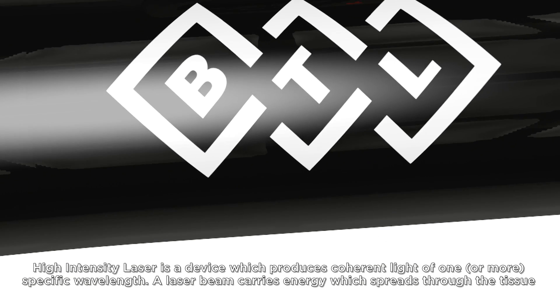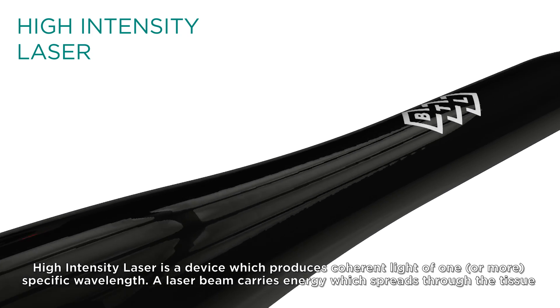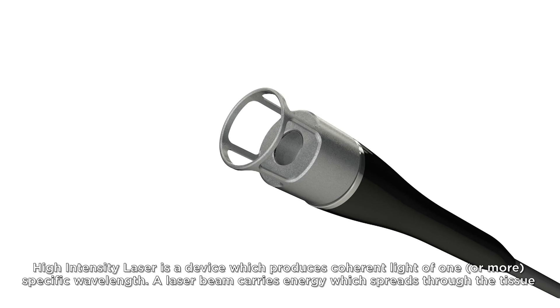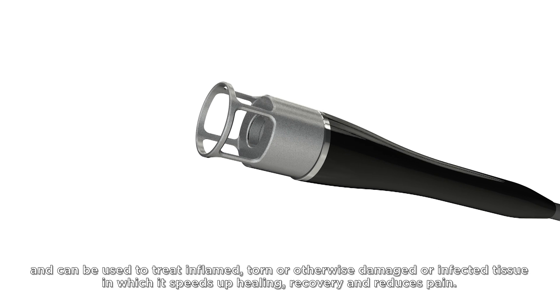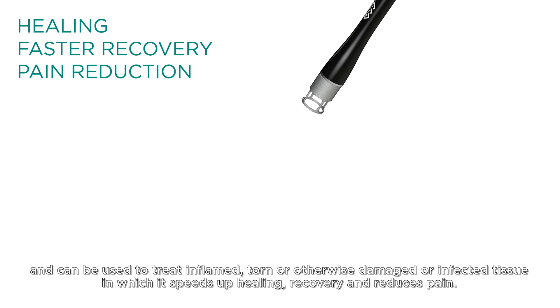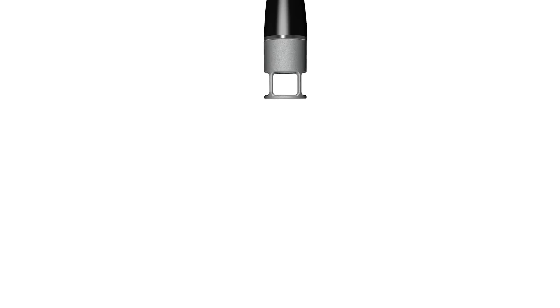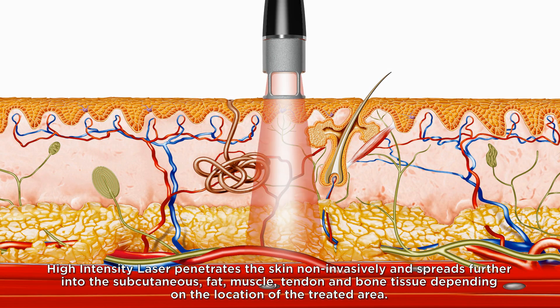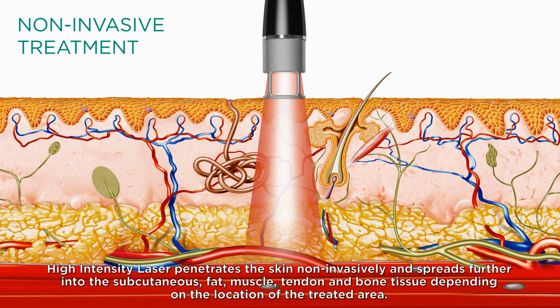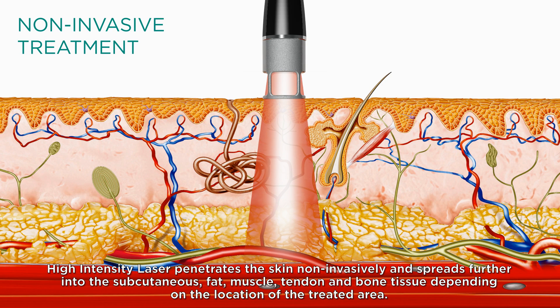High-intensity laser is a device which produces coherent light of one or more specific wavelengths. A laser beam carries energy which spreads through the tissue and can be used to treat inflamed, torn or otherwise damaged or infected tissue, in which it speeds up healing, recovery and reduces pain. High-intensity laser penetrates the skin non-invasively and spreads further into the subcutaneous fat, muscle, tendon and bone tissue depending on the location of the treated area.